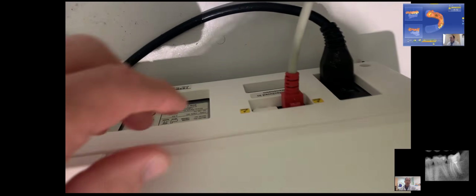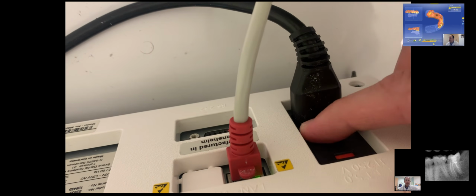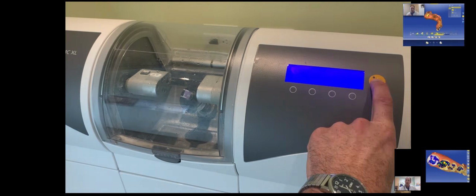Over around the back side is where we'll find the network connection. Right now we're running a connection through the Wi-Fi. There's a serial port as well. And then there's the on-off switch in the back, which many of us don't know about until we have to turn it off. When you turn on the unit, you can put it in demonstration mode, which is actually kind of fun for the patients.